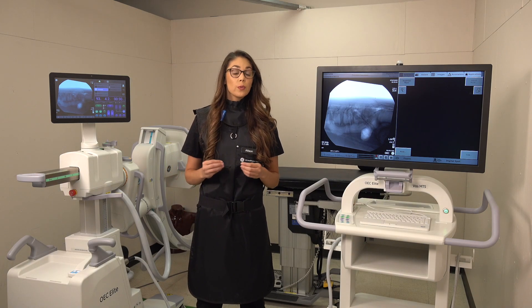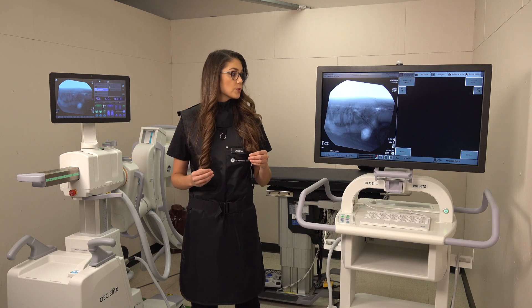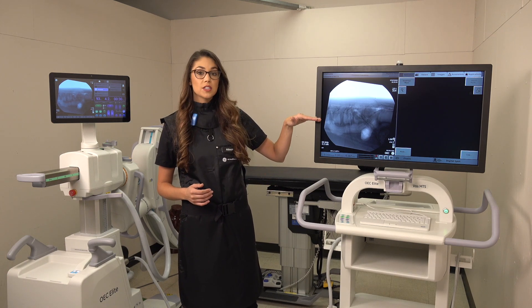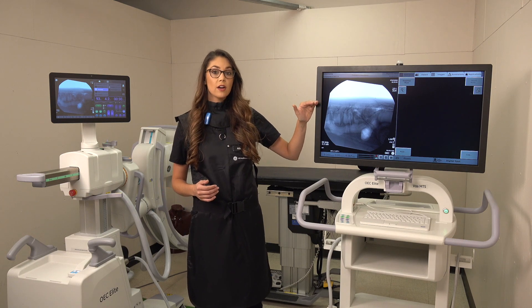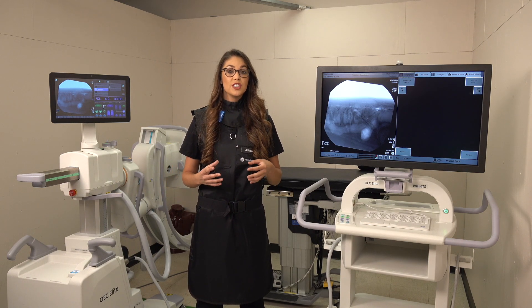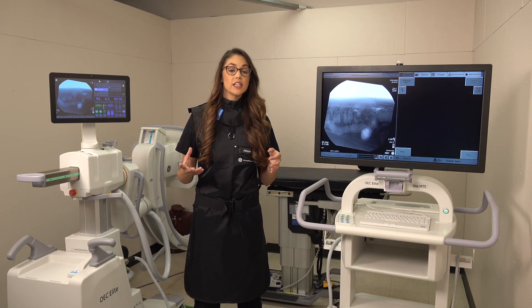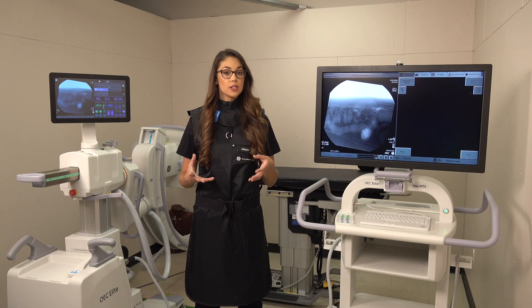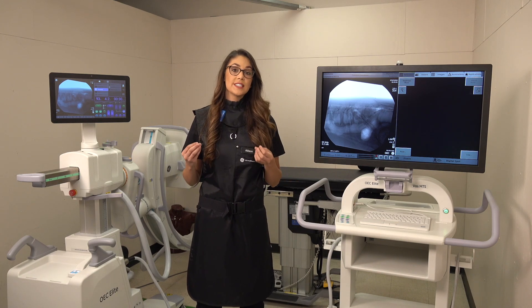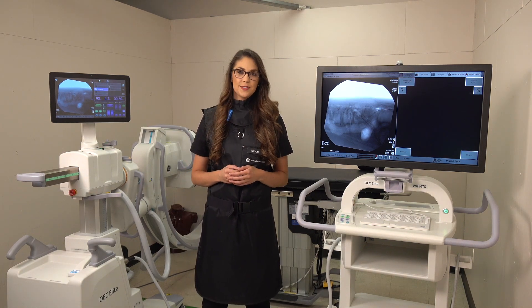A couple of cases where we really see the benefits of collimation primarily surround lateral spine imaging. With the lumbar spine it's great to remove the air. We can also utilize our iris collimation when imaging C7, removing areas of lesser density so that you have better image quality. Utilizing your collimators also reduces scatter radiation. Those are the basics for collimation — thanks for tuning in.